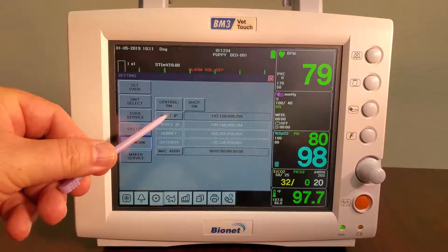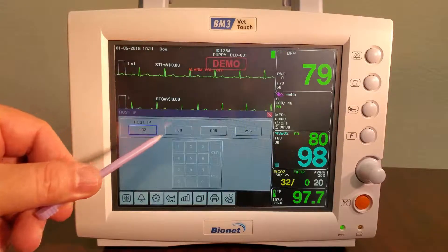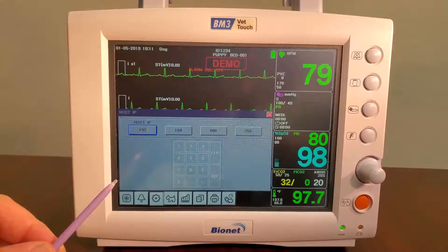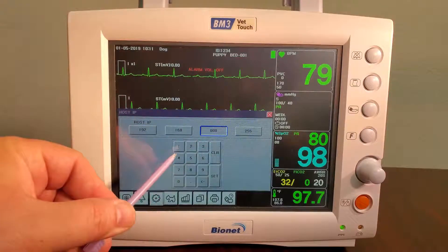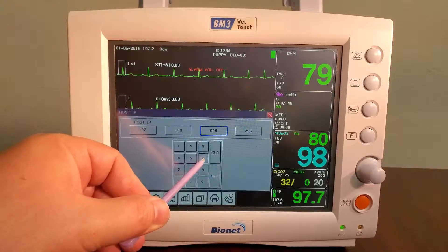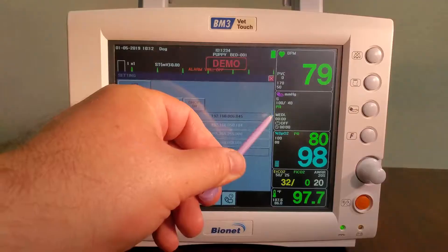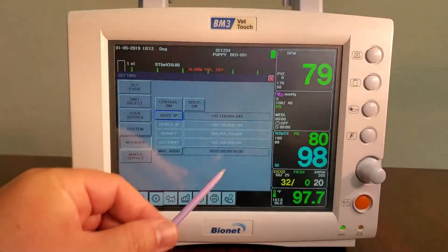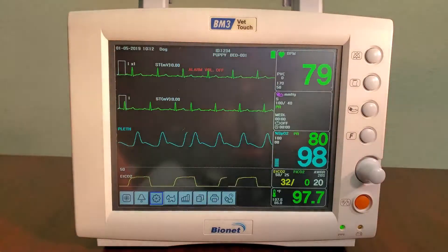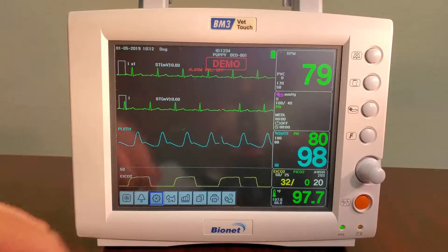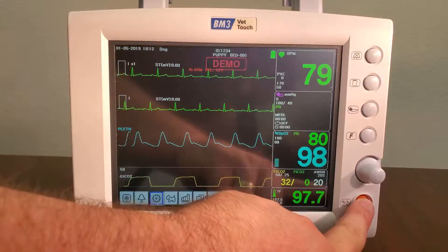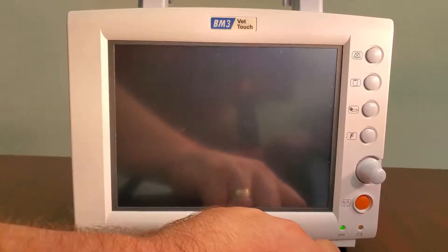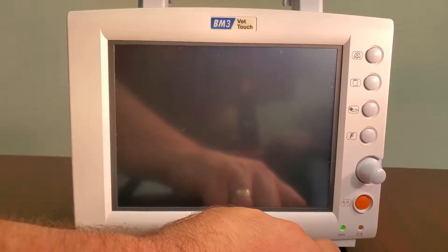Next, click on Host IP, and write in the IP address for your computer that you wrote down earlier, hitting Set after each number input. Once this is complete, exit out of all menus and power cycle the unit by turning it off and on. This will save your settings in the machine.